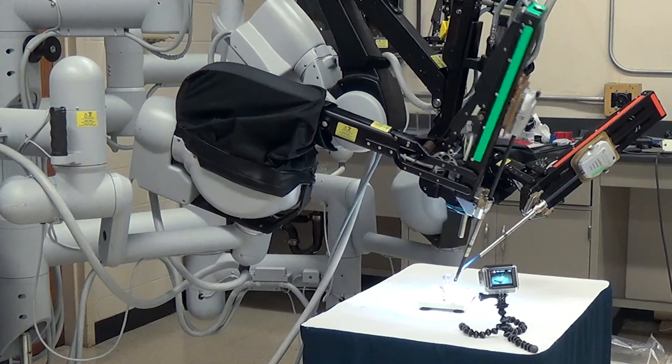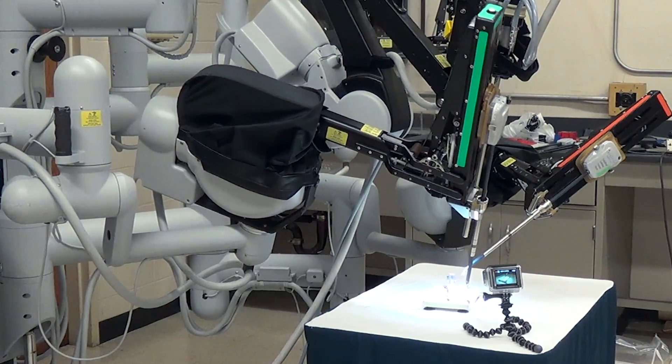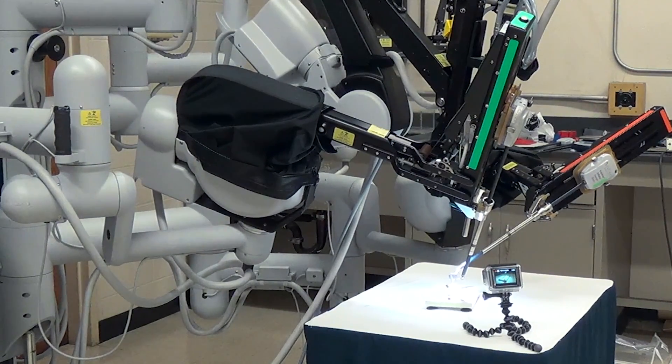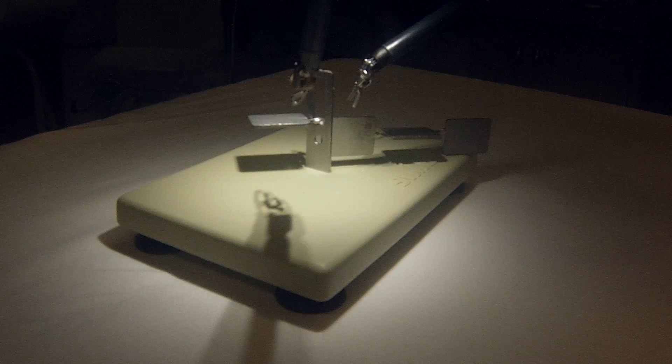A big challenge that we are facing is the fact that computer vision is still a developing science and inside the body when we perform a laparoscopic surgery, it's very difficult to discern different objects from each other, so it's a big challenge in computer vision science.